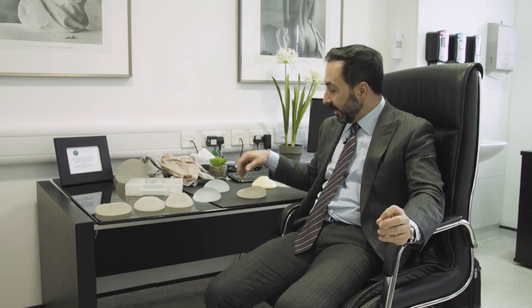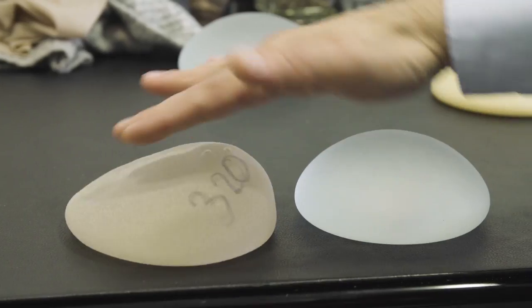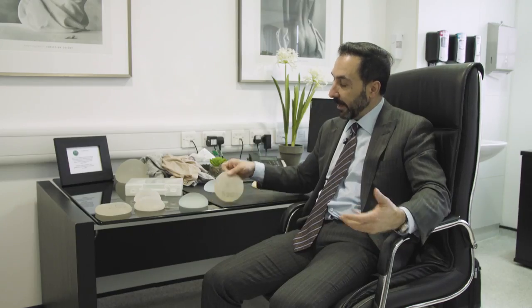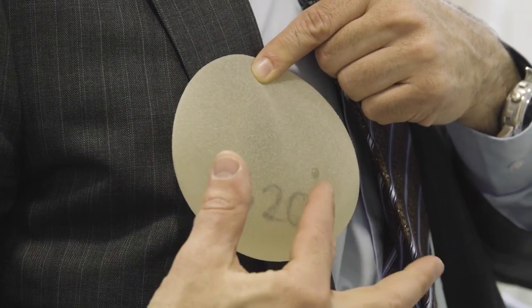Because of this, people wanted to get even more natural. So about 15-20 years ago they came out with what they call the teardrop implant. The teardrop implant looks different when you place it on the table compared to a round one. As you can see, it's higher at one end than it is on the other, thereby giving it a slight slope look. So on the table this implant looks different, which effectively gives you a teardrop effect on the breast as well. If I lay this on my chest you can see it's got a natural slope — higher at one end, lower on the other — giving you what we call a teardrop effect.